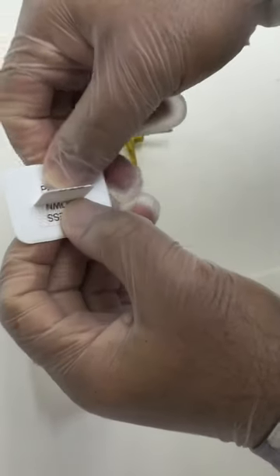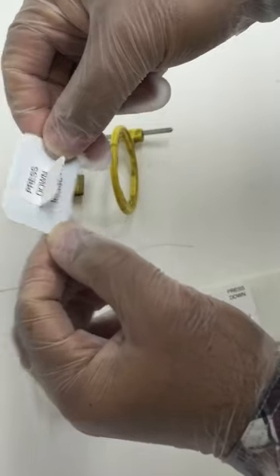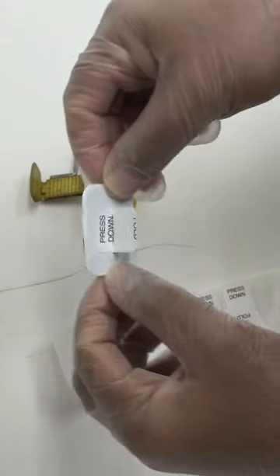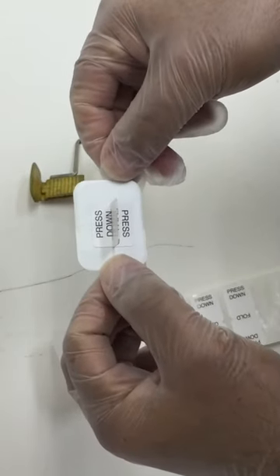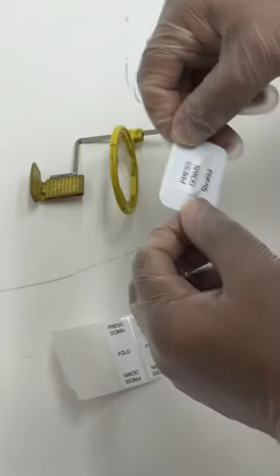So it will be straight, it will not be tilted when you put it inside the mannequin's mouth.